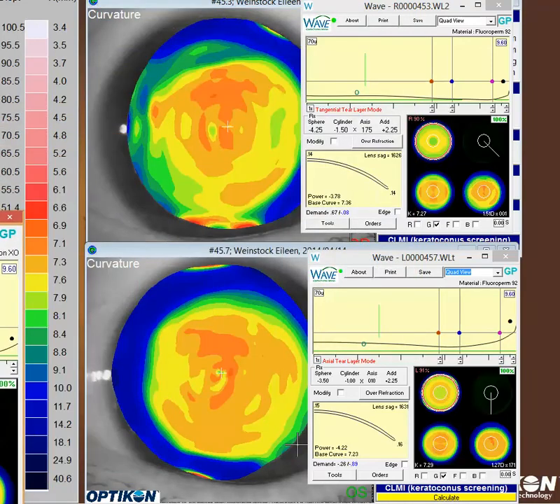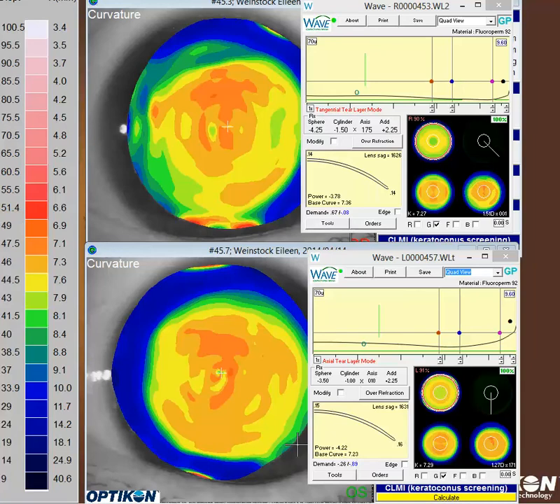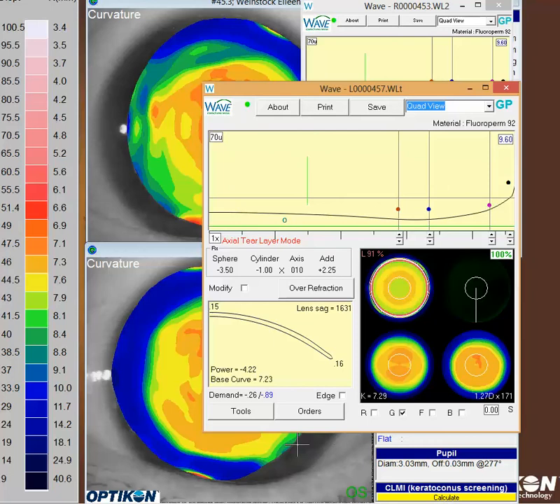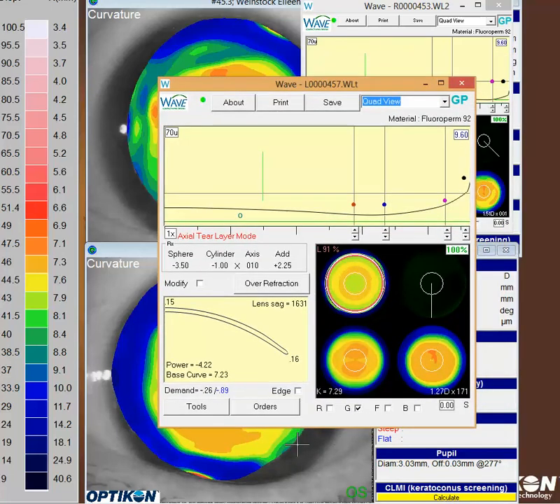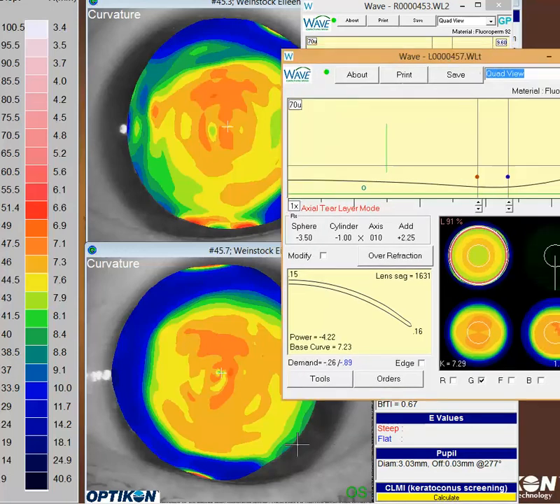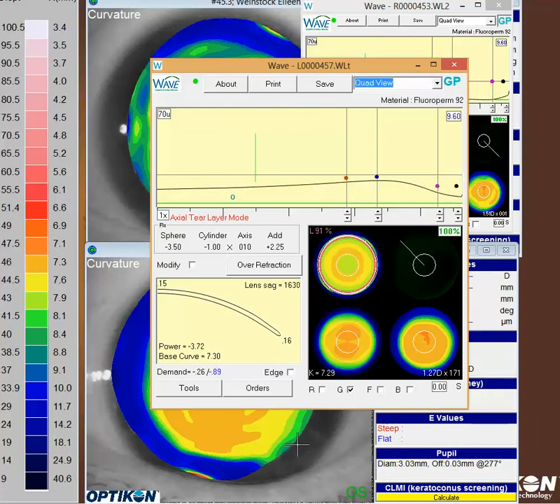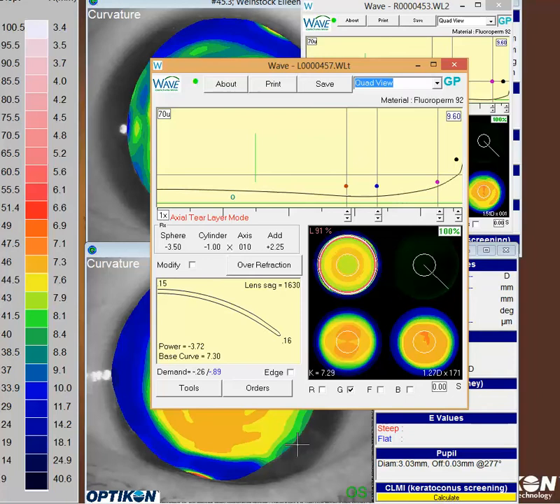When we look at the left eye, once again looking at your design, remember we've got this lower right hand corner showing almost a spherical looking cornea based on the topography. So I'm guessing what you're ending up with is a lens that is very nicely designed on not so perfect corneal data — the nice topography got hidden by the averaging of the astigmatism. Once again you get some uneven landing zone areas in the different principal meridians as you rotate around, so you really want to concentrate on getting this landing zone to line as close to that green line as you can.